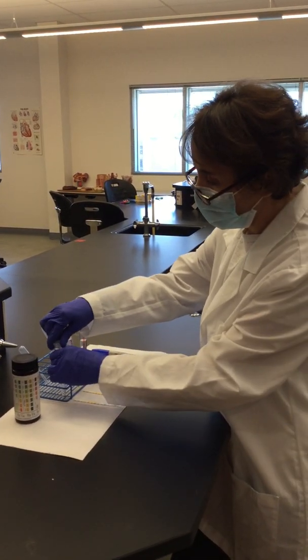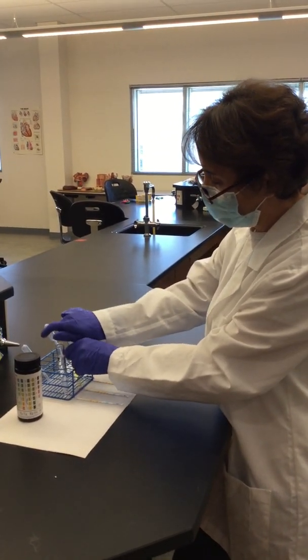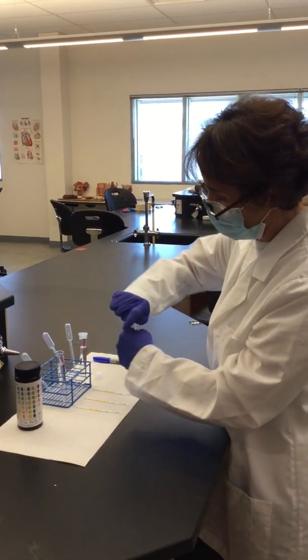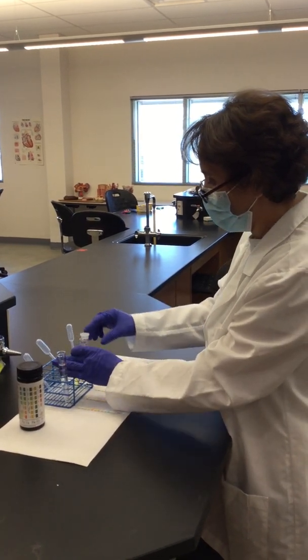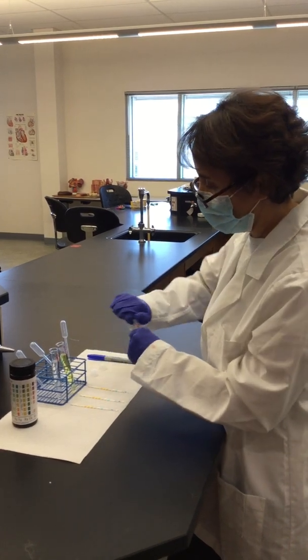So this is what we're going to do right now for each of the samples. And I'm going to open them all right now, and then I will start doing the test.